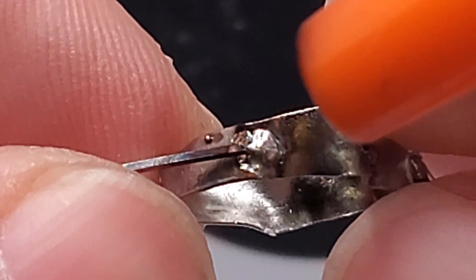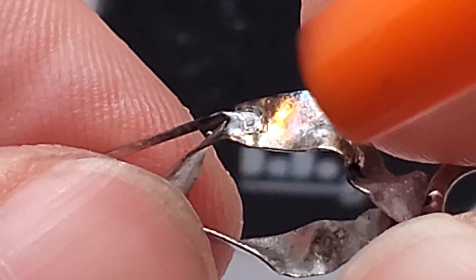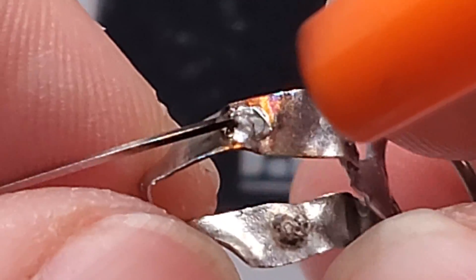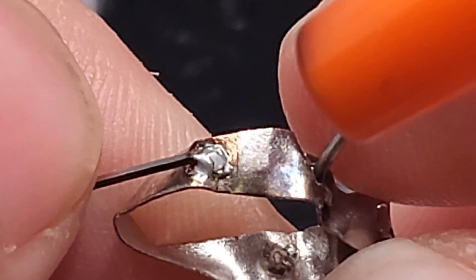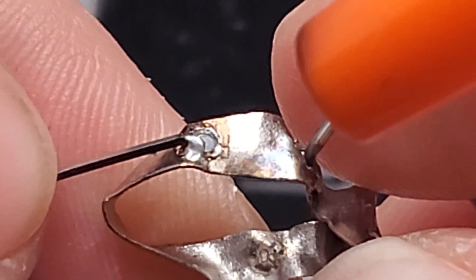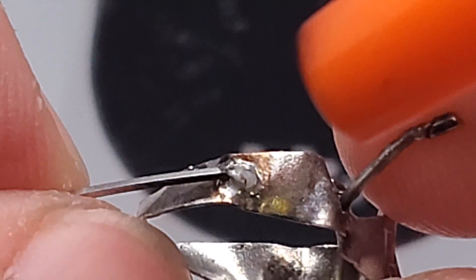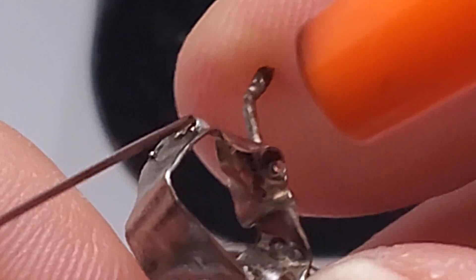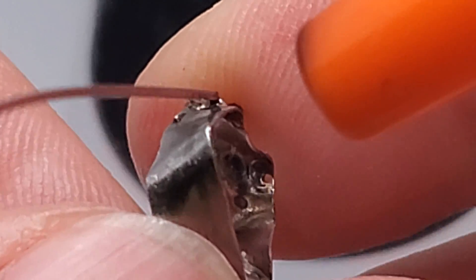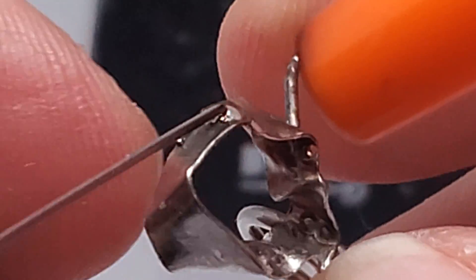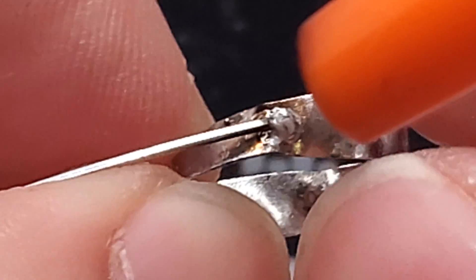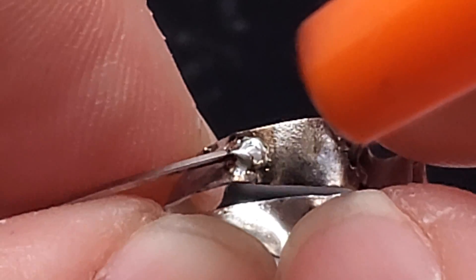Hopefully you can see that where it's really slick, no bumps whatsoever. That would be comfortable in a patient's mouth. If you wanted to take the time, you could do a smaller spot size and fill that in so there's less chance of getting food in there.